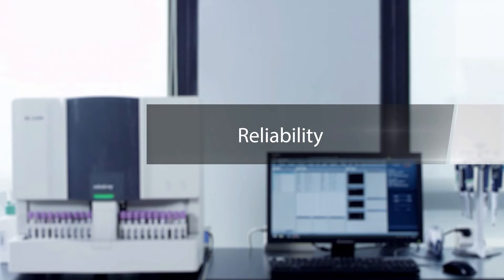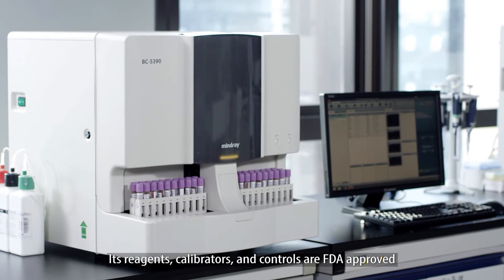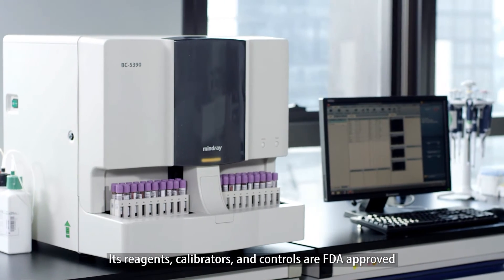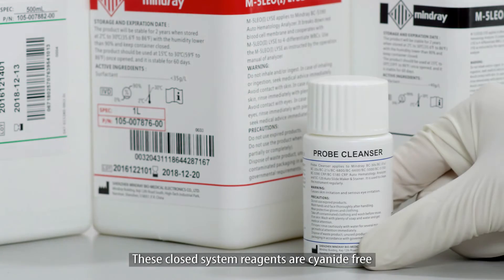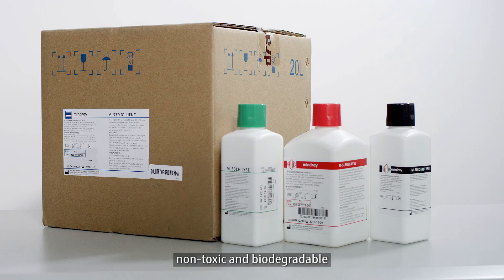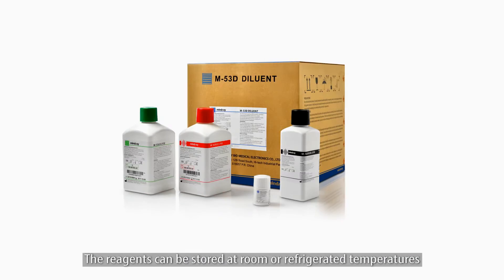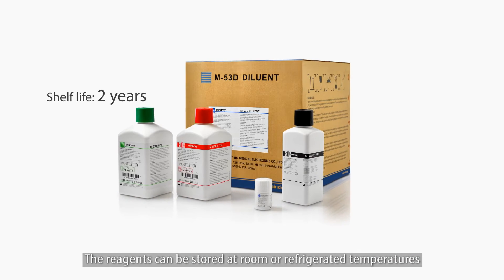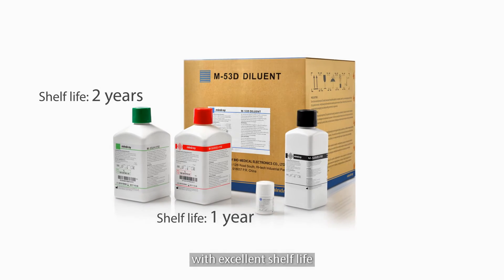Reliability. Its reagents, calibrators, and controls are FDA approved. These closed-system reagents are cyanide-free, non-toxic, and biodegradable. The reagents can be stored at room or refrigerated temperatures with excellent shelf life.